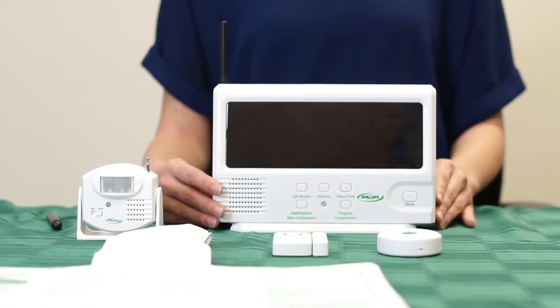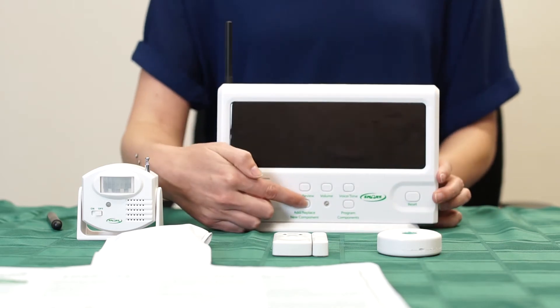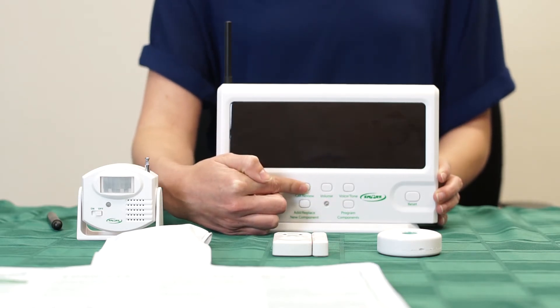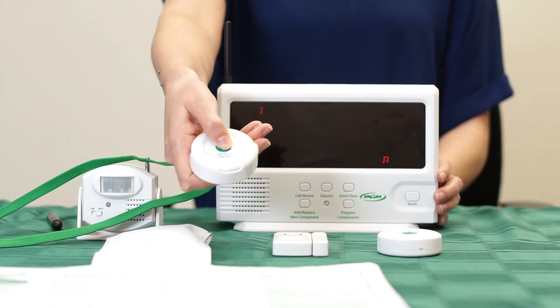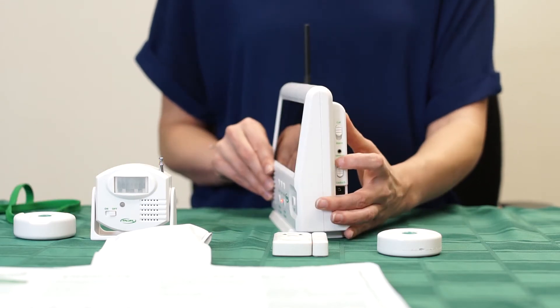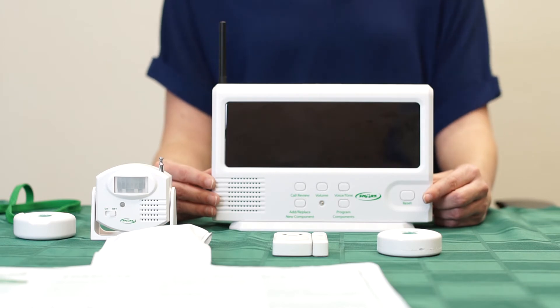To replace components in the central monitor with new components, you must first start by moving the lock/unlock switch to the unlock position. Press and hold the add/replace new components button for two beeps and a tone. Now press the call review button until the central monitor displays the number of the component that you wish to replace. With the number selected, activate the new component. The central monitor will say the number of the component that you just replaced. Once you are done with programming, move the lock/unlock switch to the lock position and press the reset button once. Now you can test the component that you just added to the central monitor.